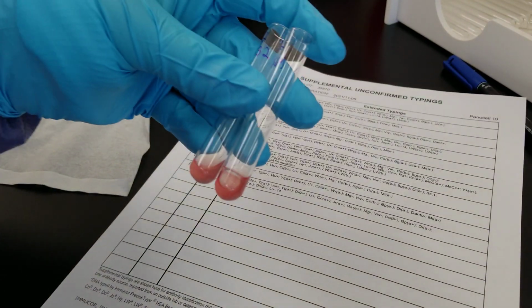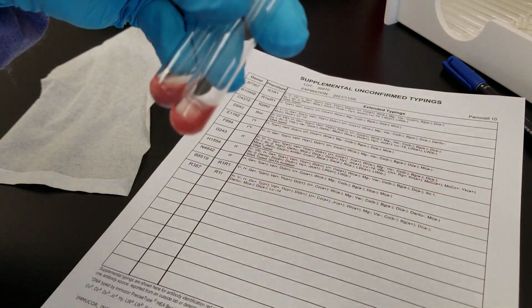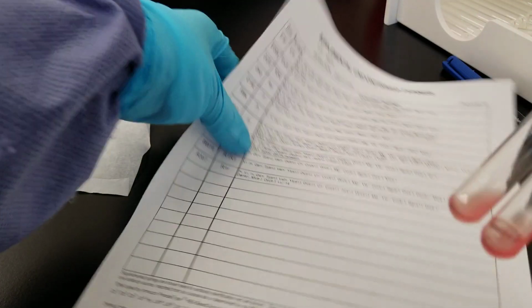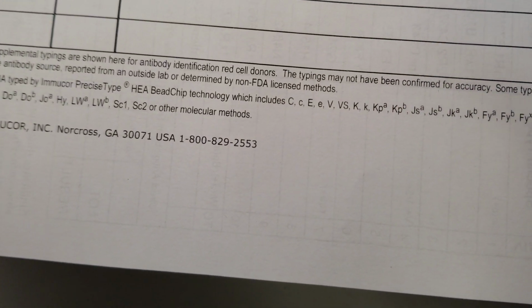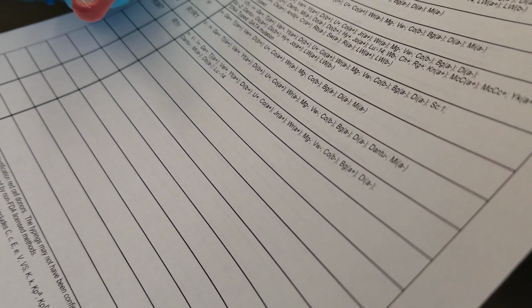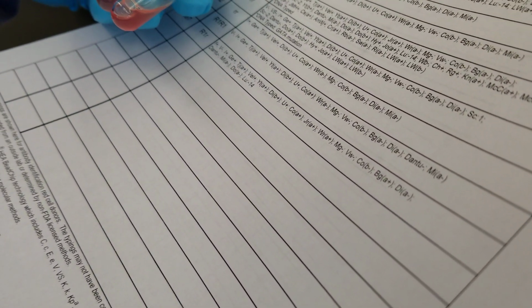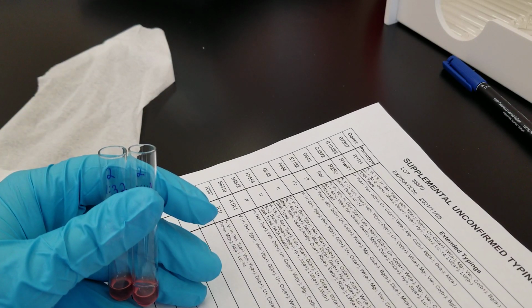So they're looking weak also. So these two both are weak. So up to 64 is weak, but we're considering only 1 plus as being something that you would count. Man, it's hard to show it on the camera. Yeah, so 32 and 64, 1, 2, 3, 4, 5, 6, and 7 are weak.